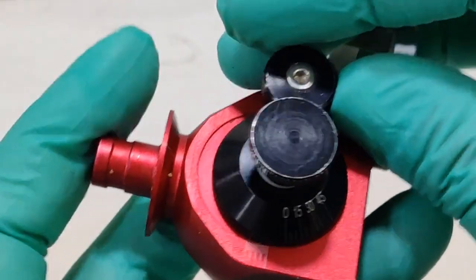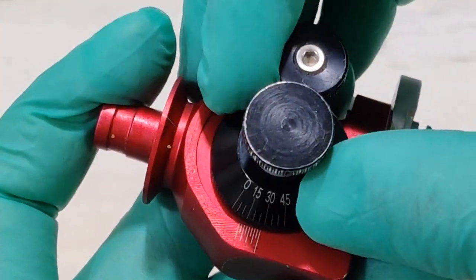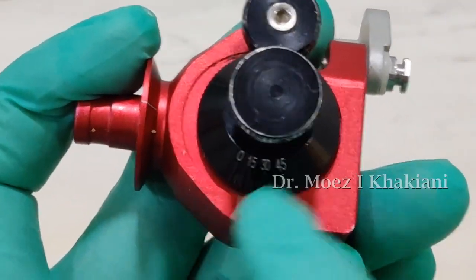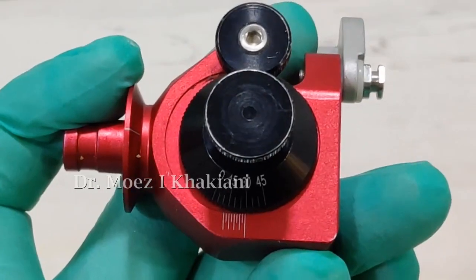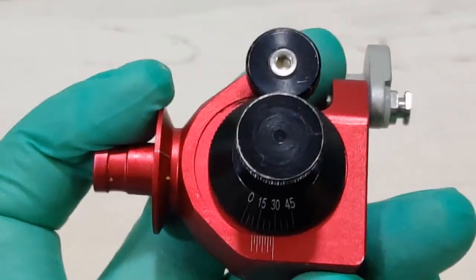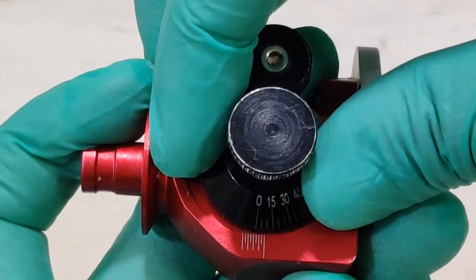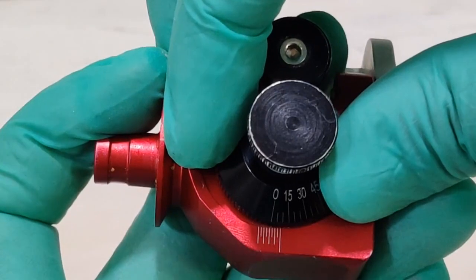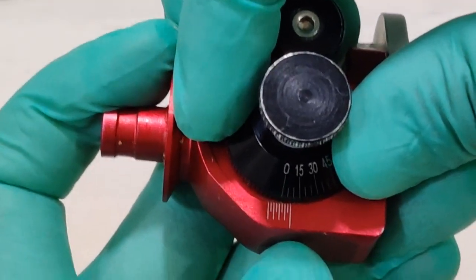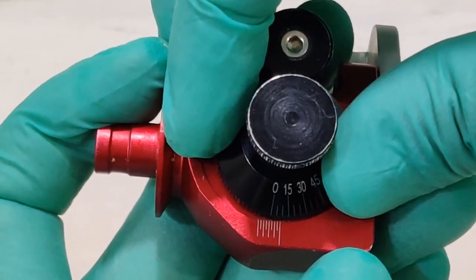All right. Now let's look at the other knob. I open this knob. I can rotate this dial here. Now this dial goes from 0 all the way to 45. And this represents the lateral condylar guidance angle. When I set the angle such that the 0 line coincides with the middle line of these four, which means 0 coincides with 2, I believe the L value is set at 0 degrees.